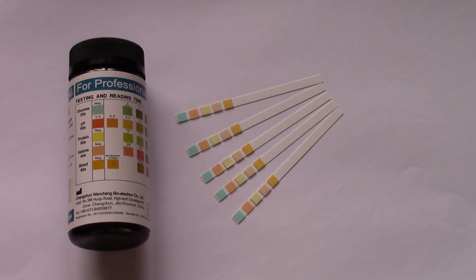Finally, the last parameter on these is the pH or acidity level in urine. A lot of you will be interested in screening for the pH in the urine and the body generally to see whether you've got a normal pH. Things that will affect the pH are things like ketoacidosis, acidosis generally, dietary measures can have an effect on the pH. It will also be affected quite often in bladder infections but the two key indicators of that on these test strips would be the presence of blood and protein.